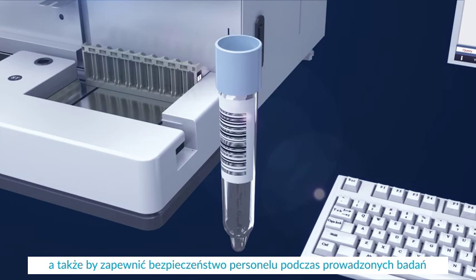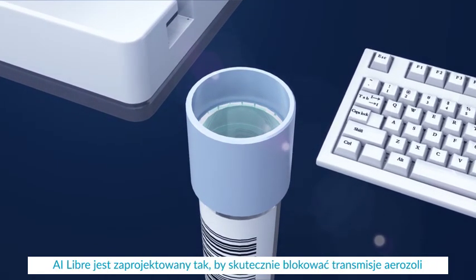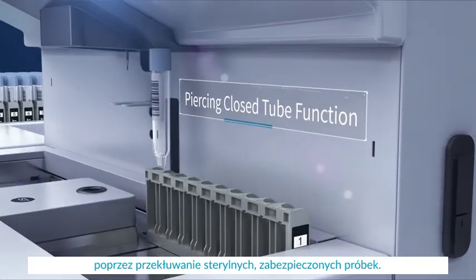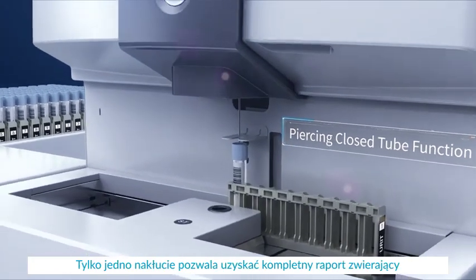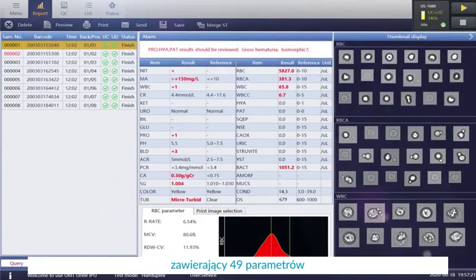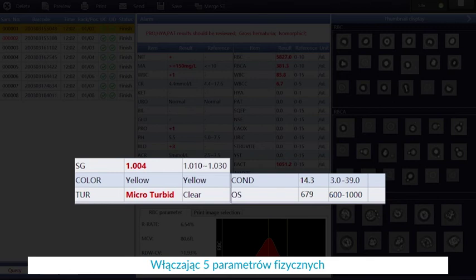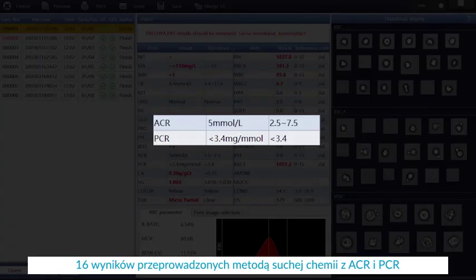The AI Labor US 1680 is designed to effectively block aerosol transmission and greatly guarantee operation biosecurity through a piercing sampling approach. It includes test tubes with just one-time sampling to obtain a complete urinalysis report covering 49 items, including five physical examination results and 16 dry chemistry parameters with ACR and PCR.